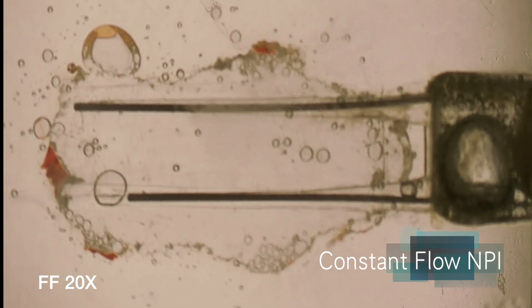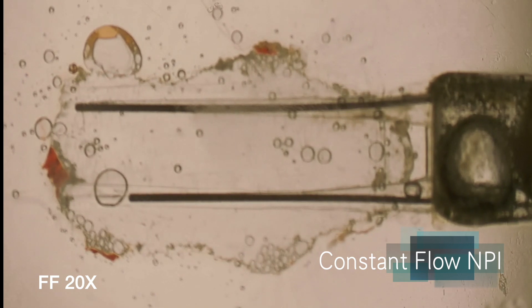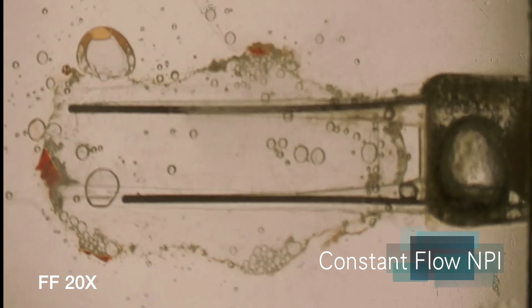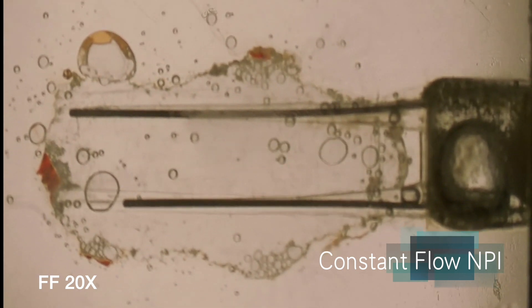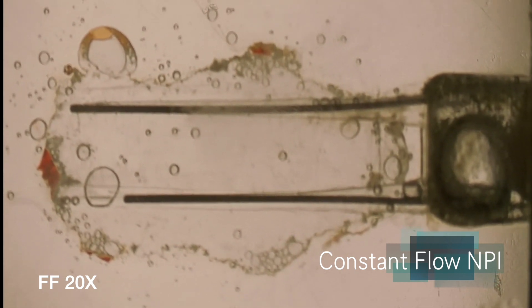We're seeing an effect beyond the end by at least two, two and a half, three, almost three millimeters below. Obviously, the closer the little vent holes are, the quicker it happens.